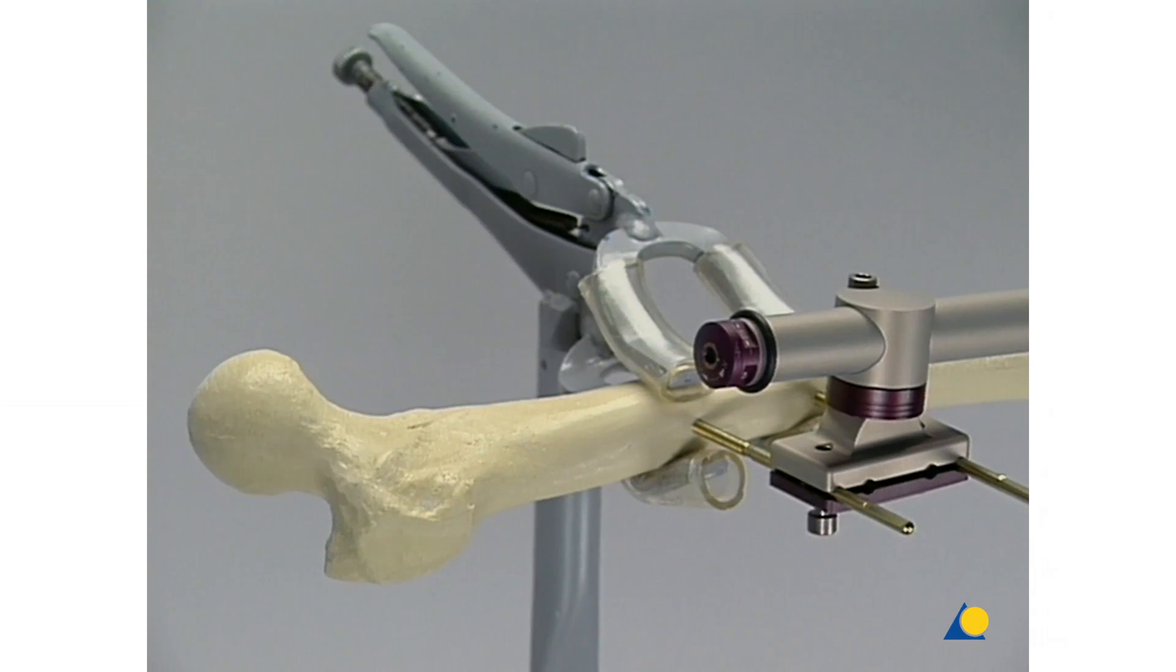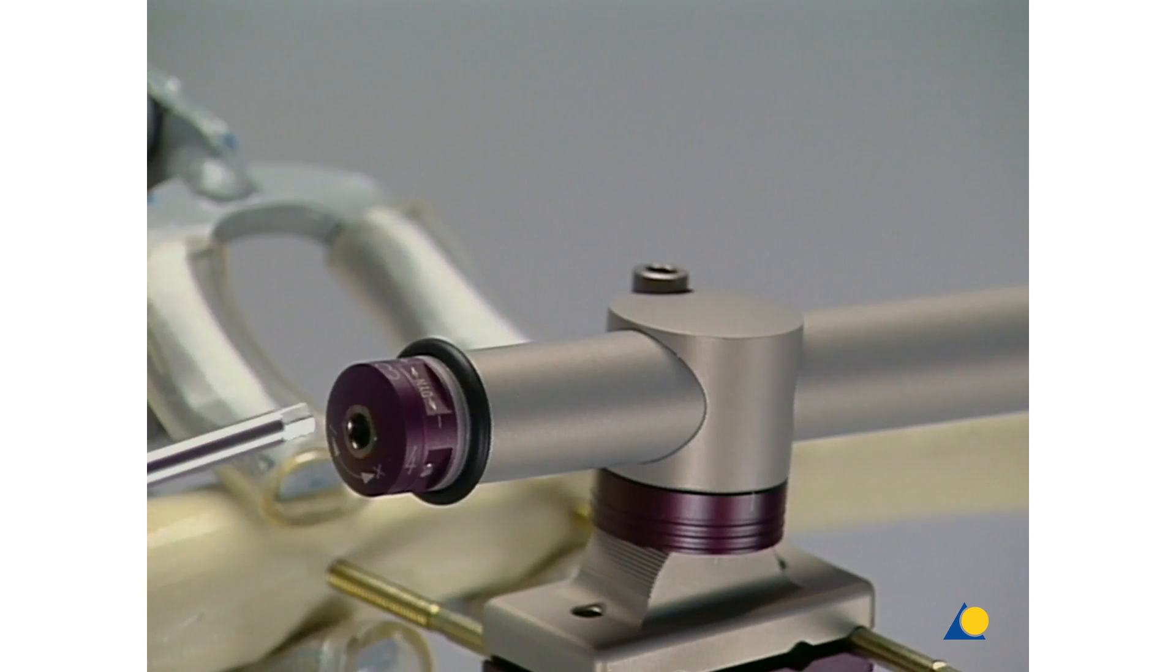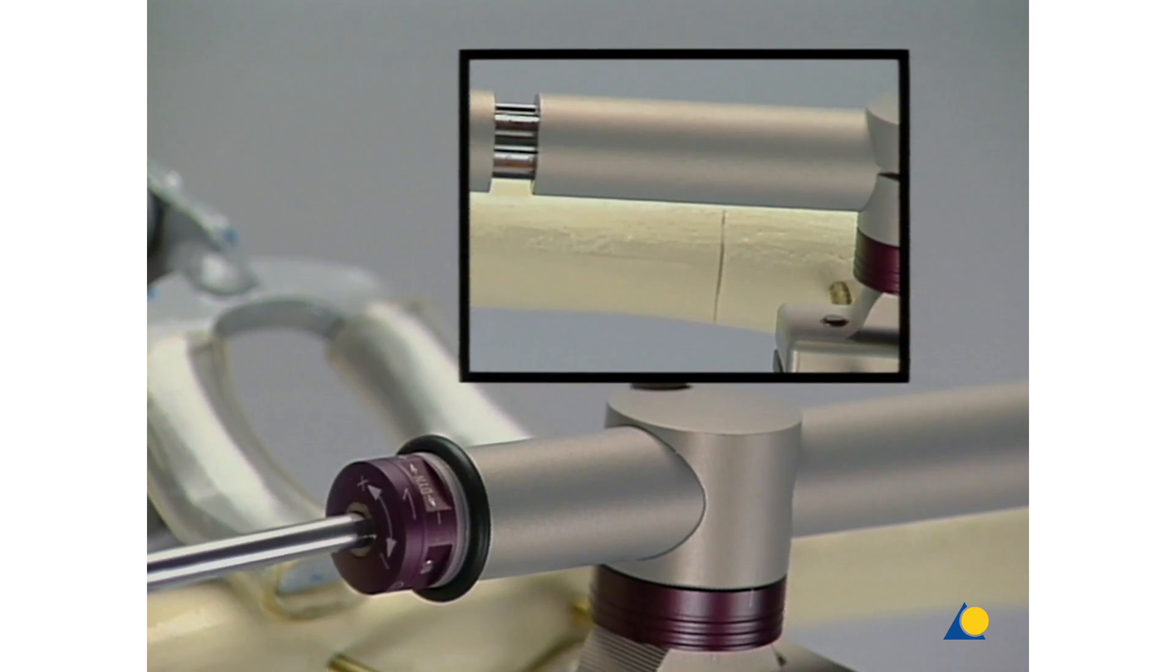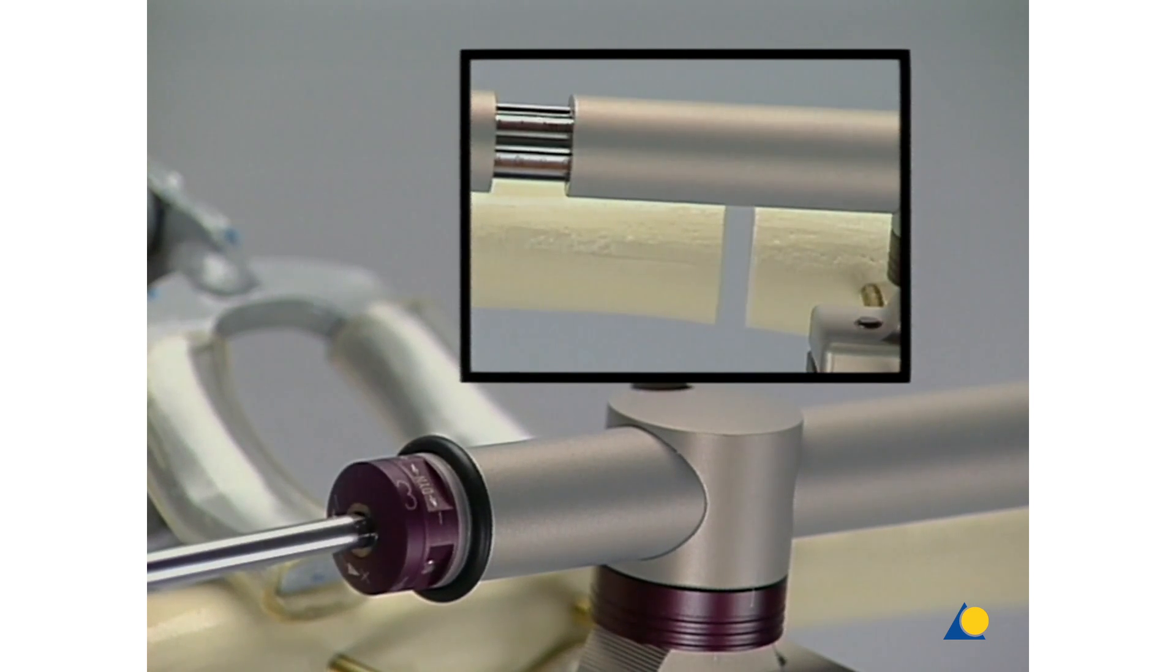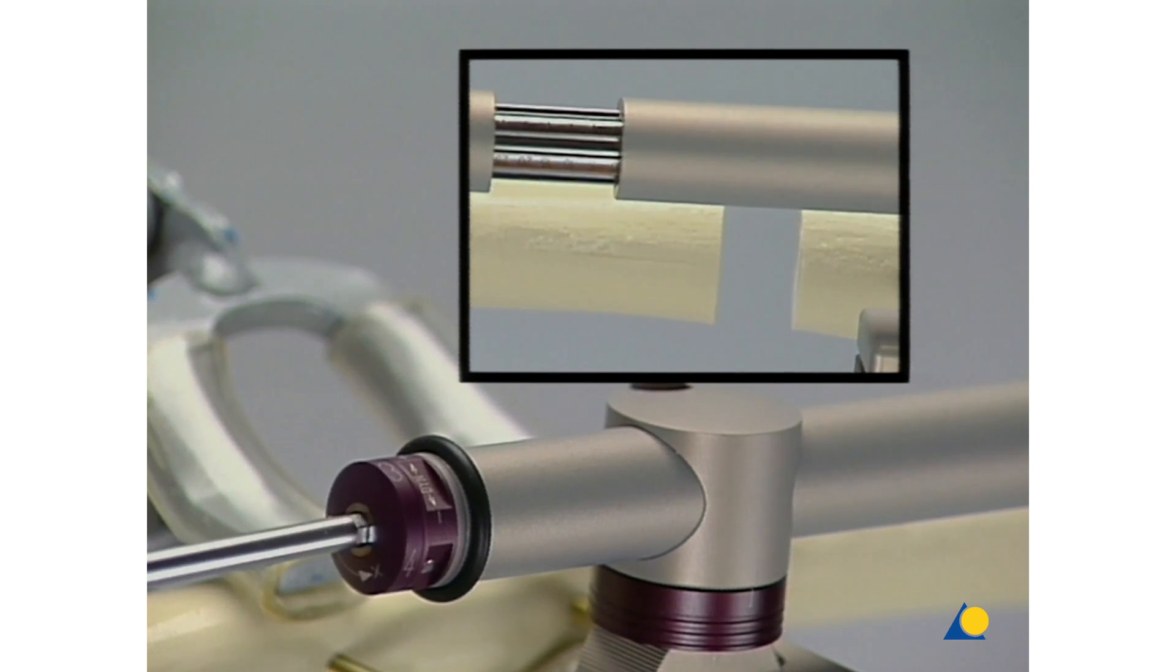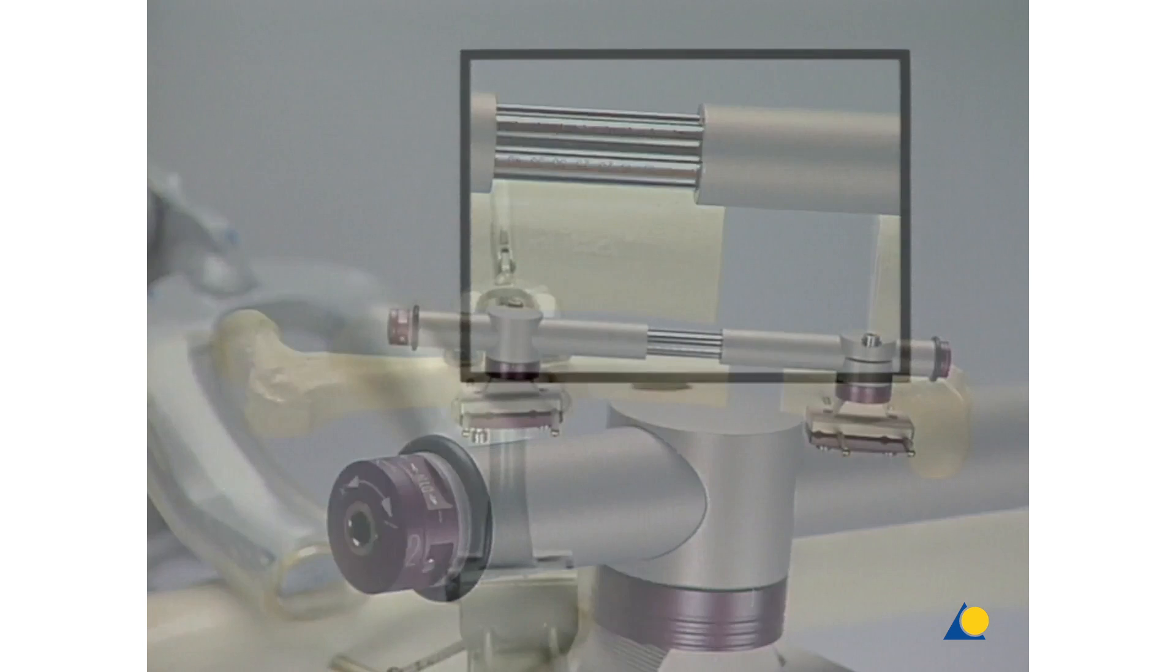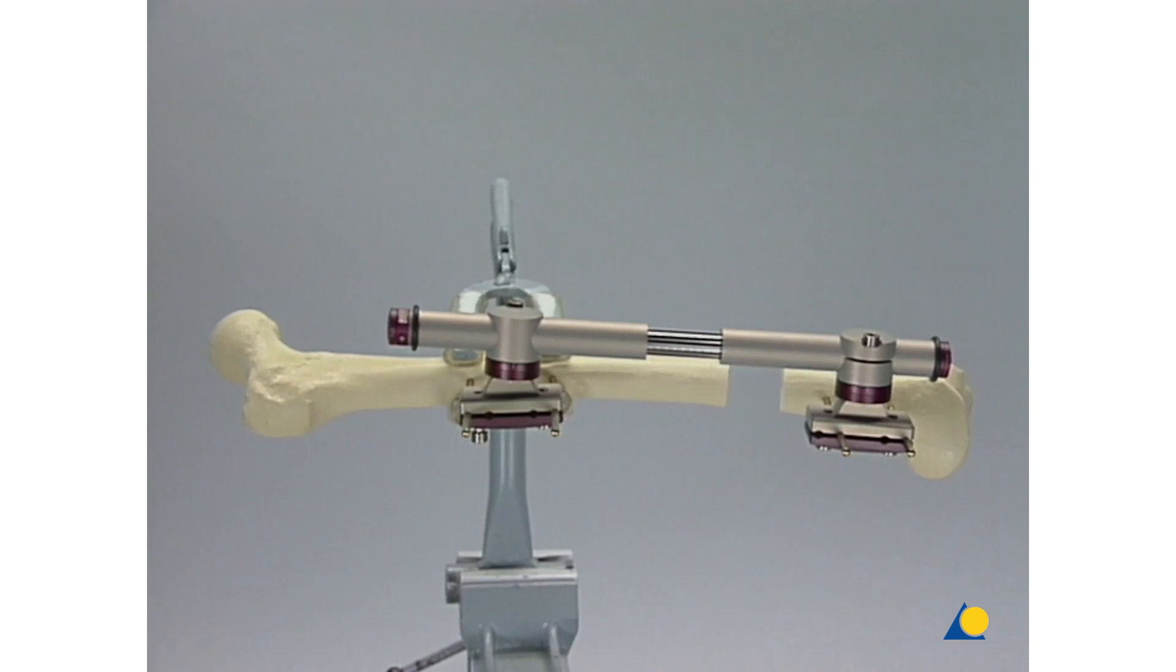The bone can be lengthened at both ends of the central body. The patient will do it himself using the end facing him. One full rotation corresponds to one millimeter. The millimeters are marked in four single steps per millimeter on the distraction disc of the central body, indicated as one to four. The lengthening distance can also be read from a scale on the spline shaft of the central body. Lengthening of up to 15 centimeters can be achieved.